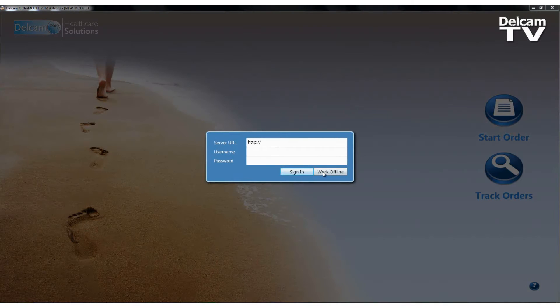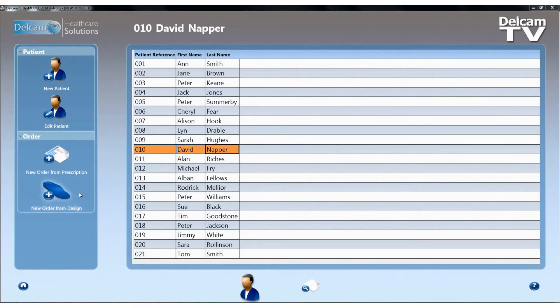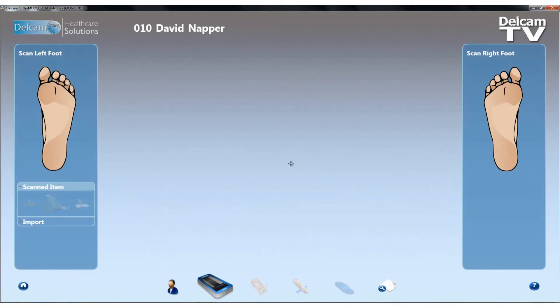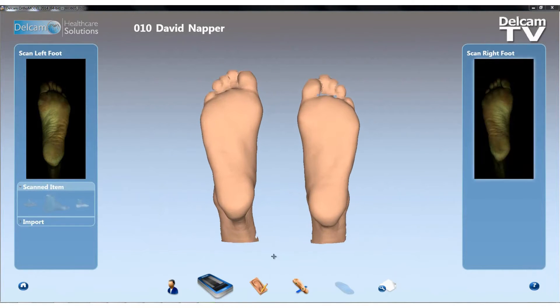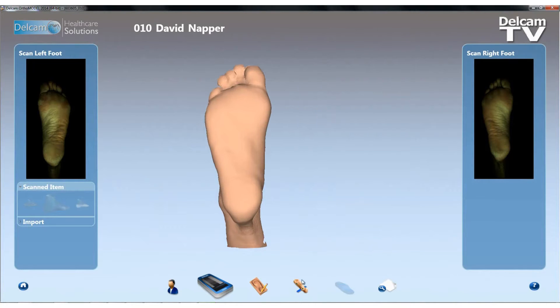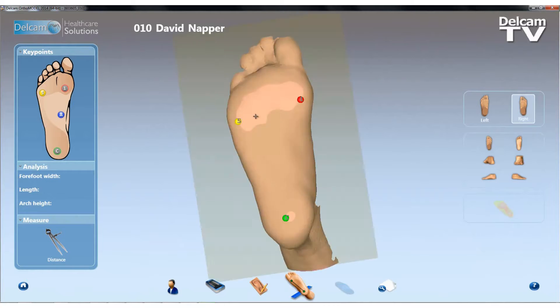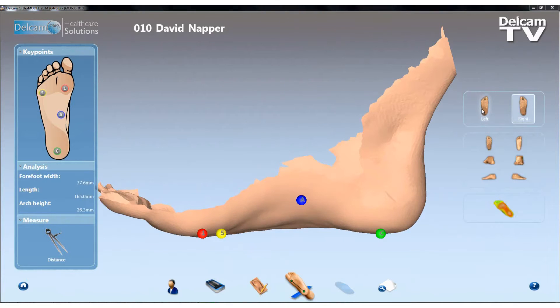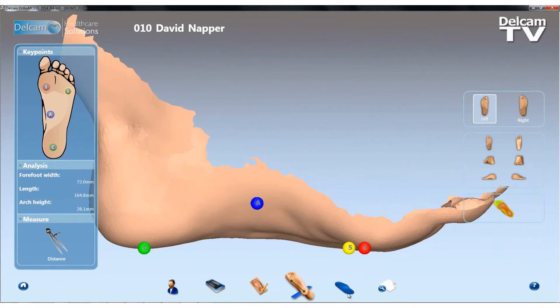I'm going to hit the Start Order button, work offline, and I'll be presented with my patient list. I'll select the patient I'm creating the custom orthotic insoles for and click New Order from Design. I'll load in the left foot and right foot scan data. I don't need to do any scan editing, so I'll move straight forward to the scan alignment page where I can enter the four critical points for the left foot and the right foot: heel centre, first met point, fifth met point, and the arch apex.